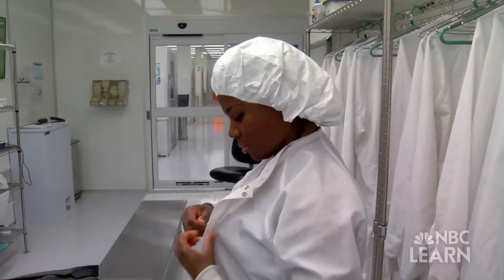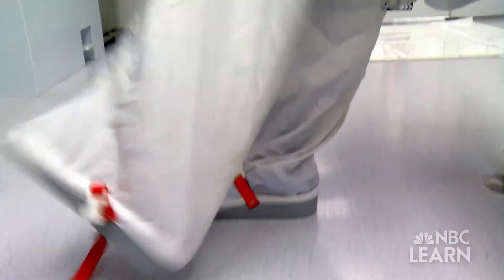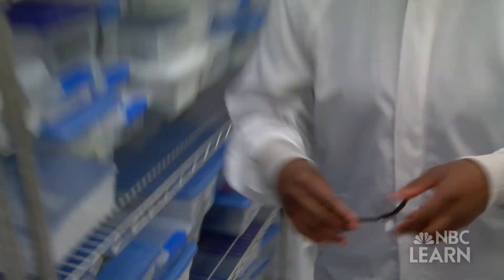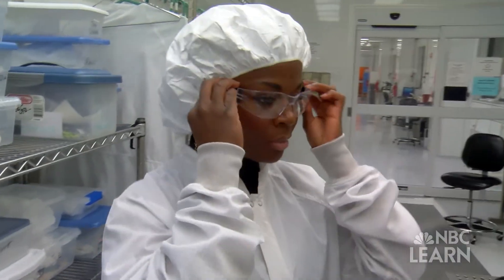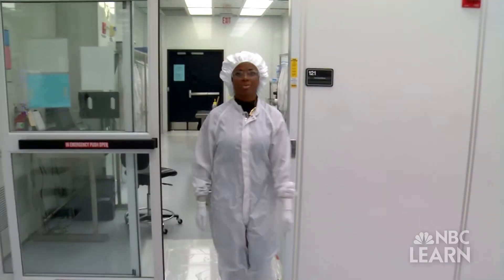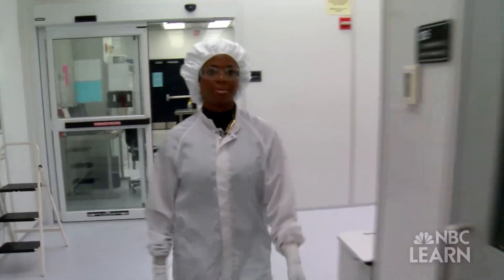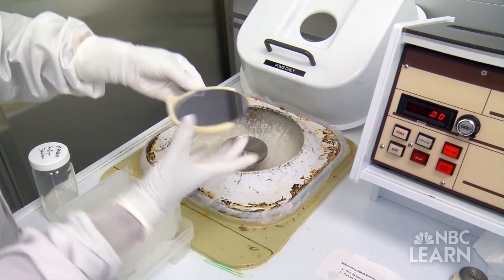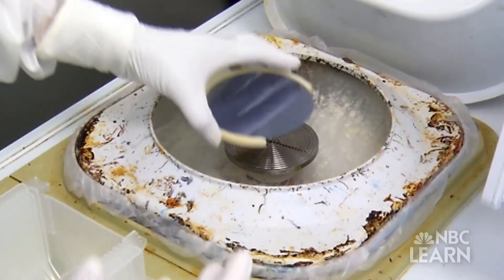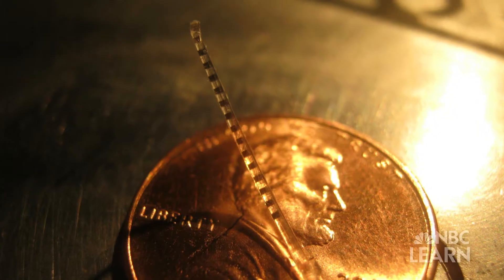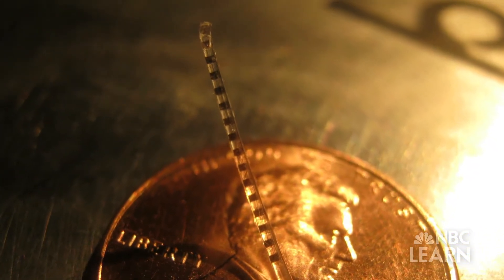Johnson now operates MEMSTEM at the University of Louisville, where she demonstrates her microfabrication process. In a controlled manufacturing environment called a clean room, she begins with basic silicon wafers, which will be used to form the electrode arrays that will stimulate the auditory nerve.